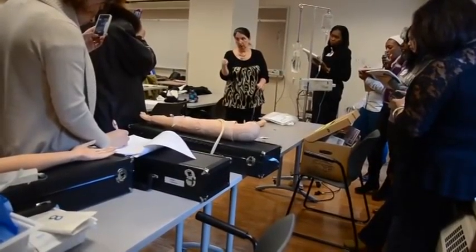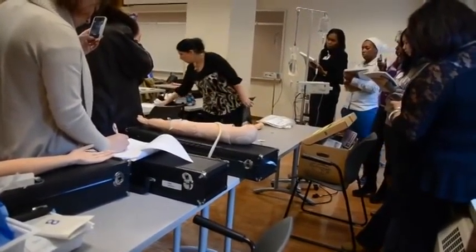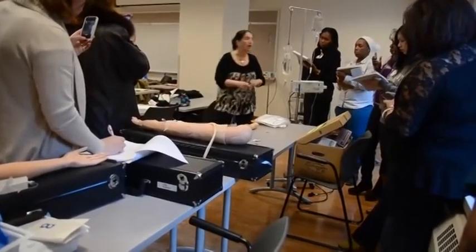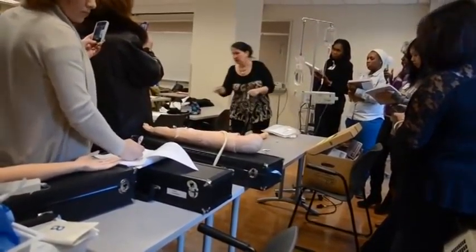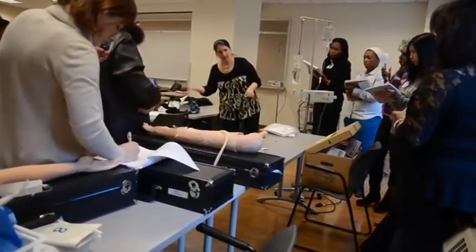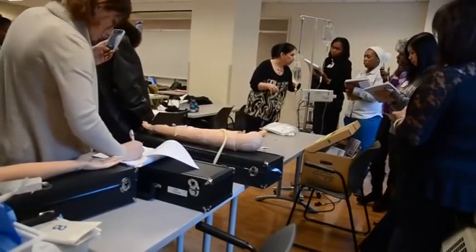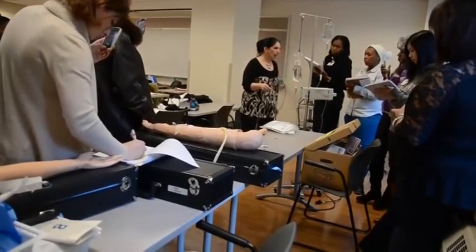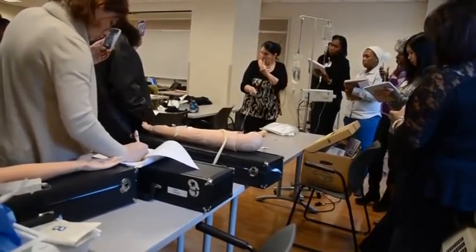So you open the one that's the antibiotic completely wide open, and you regulate it from the one that's closer to the patient. Then we'll tell you again how long. This is a 100cc bag — 100cc times 15, divided by the number of minutes, 30 or 60, depending on what we tell you. Skills 1, 2, and 4 all have a drip factor of 15. The only one that has 60 is number 3 — the one where you go through the pump.